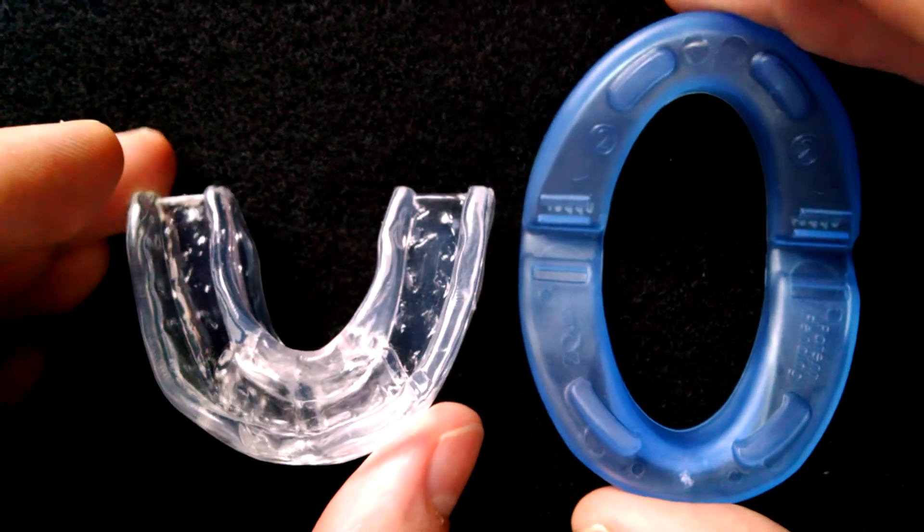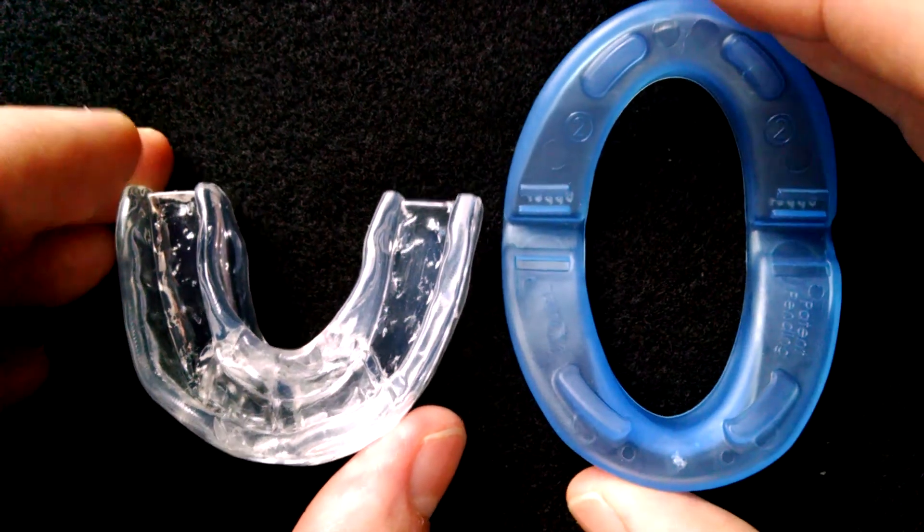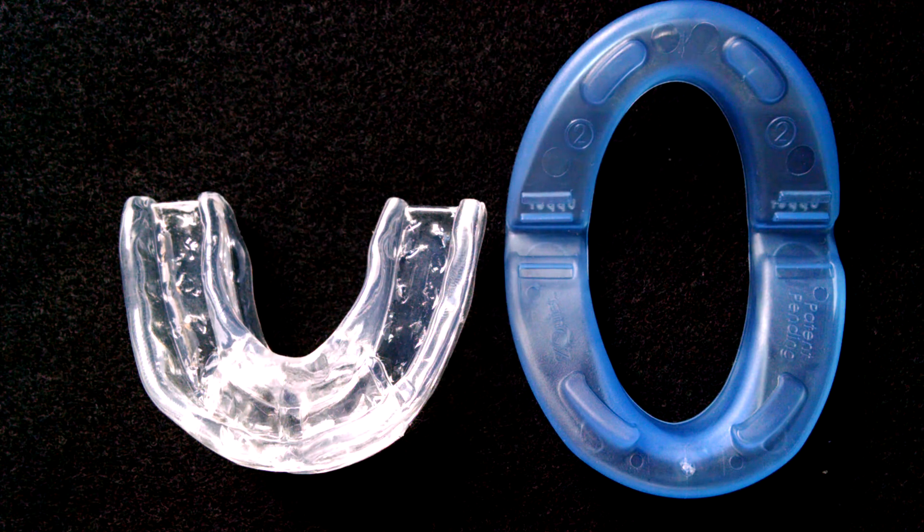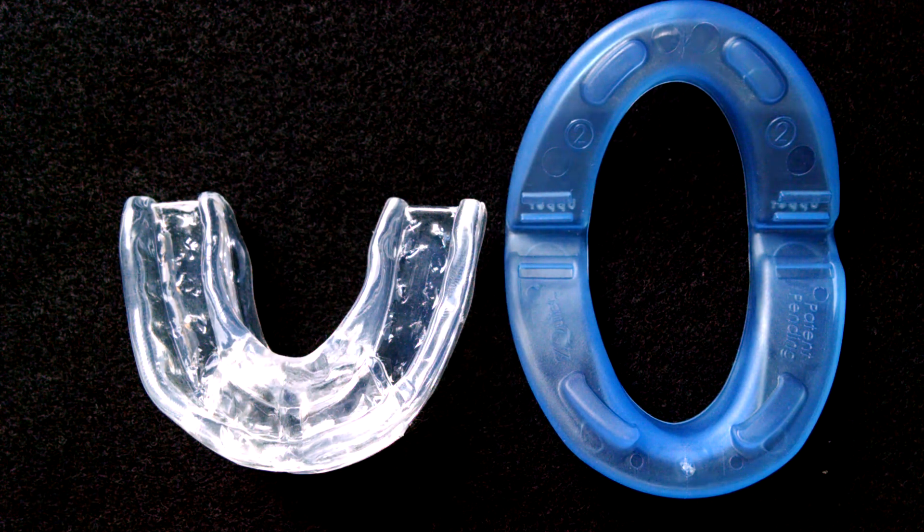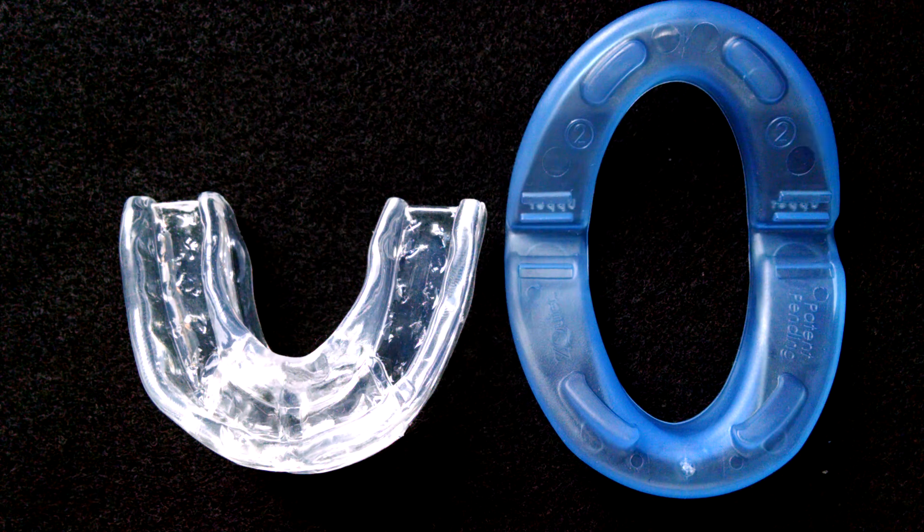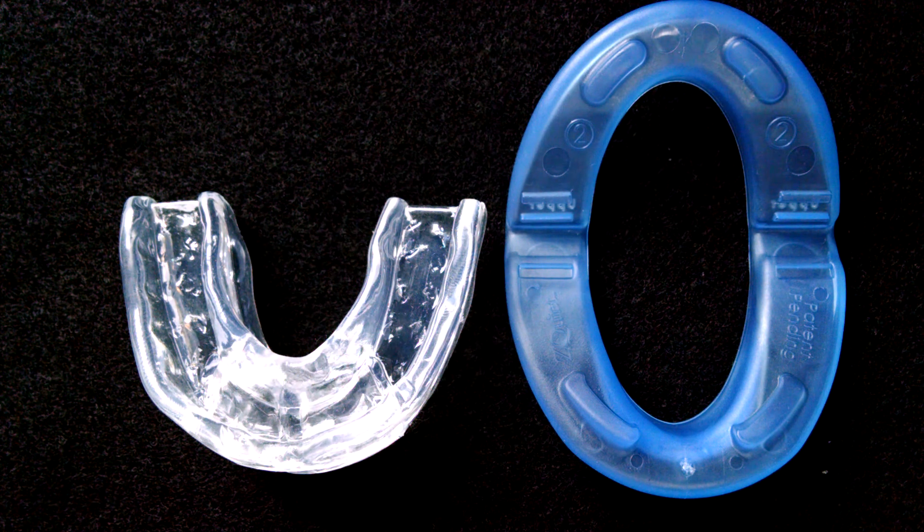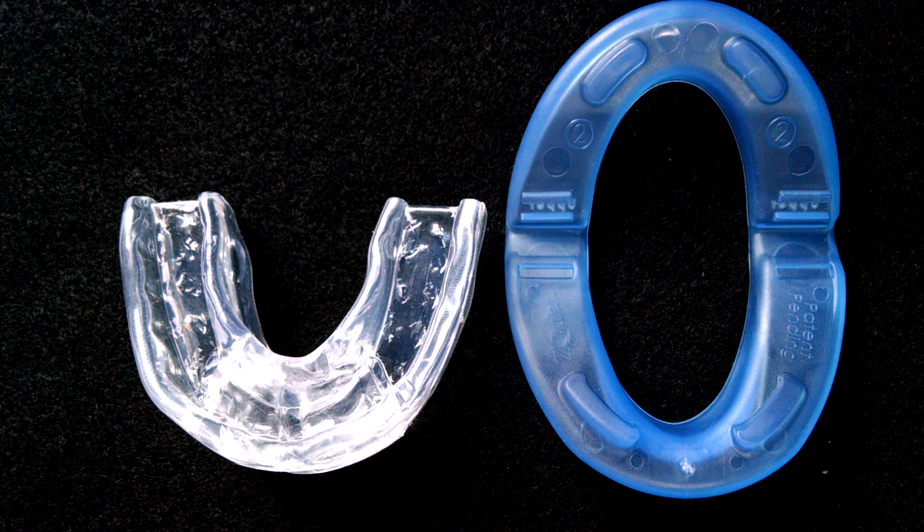So that's the Z-Quiet and Rip Snore. For more information on either one of these products or to check out other reviews you can visit my website at snoremouthpieceguide.com or you can check out some of my other YouTube videos.